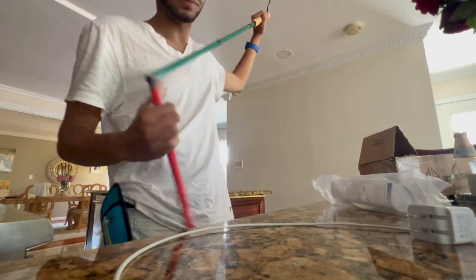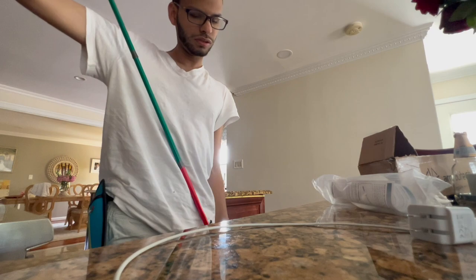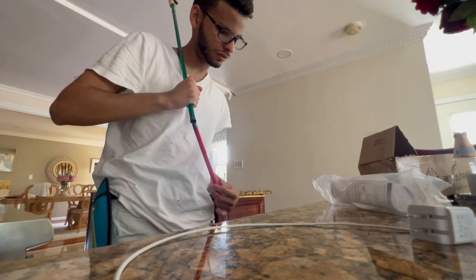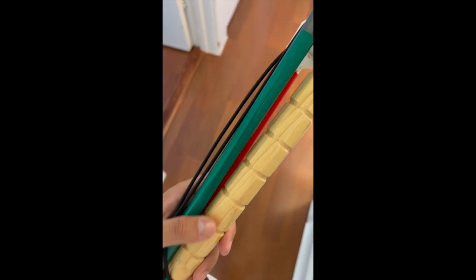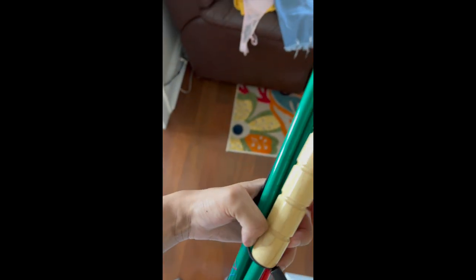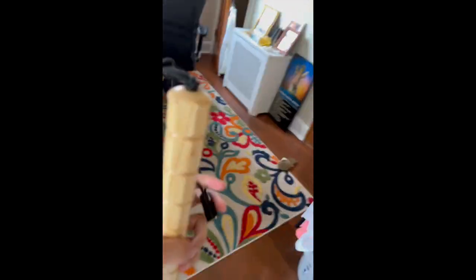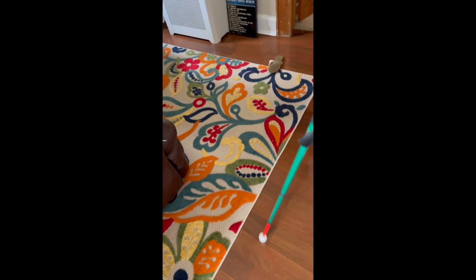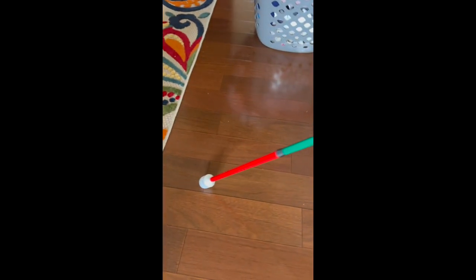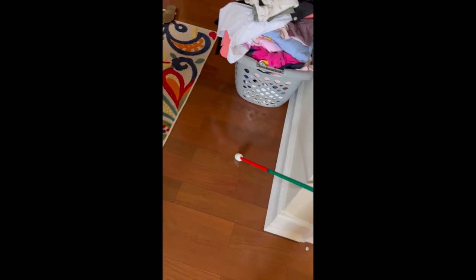Dude, this is what I need. Unfortunately, I do need at least two hands to grab the cane and pull it out, but it's really easy to just slip out. This cane — it's red at the bottom and green on the top with a wooden handle. It sounds like this. Let me unfold it. This is my premium aluminum cane, custom made. It's green on the top and red on the bottom. I didn't order a tip — I already had a tip. The tip is the roller thing at the end; it's a marshmallow tip, so it rolls, which makes it easier for me to move it. It doesn't get stuck.